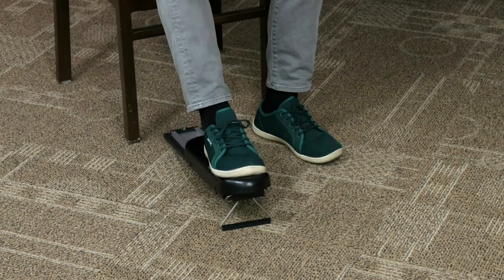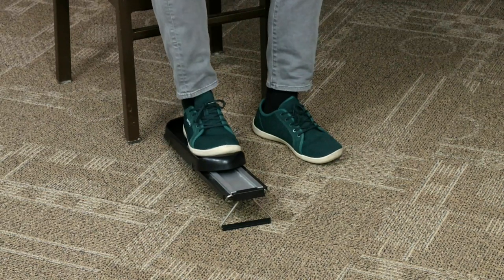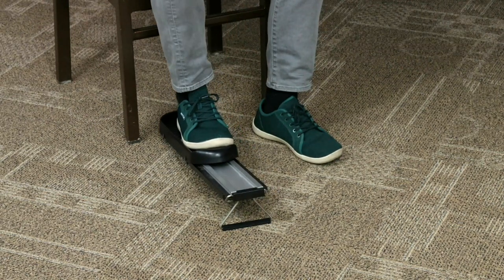Some people may have good knee motion after the surgery, but their ankles are tight, so this puts a little less stress on your ankle. It's good for people with bad ankles too.